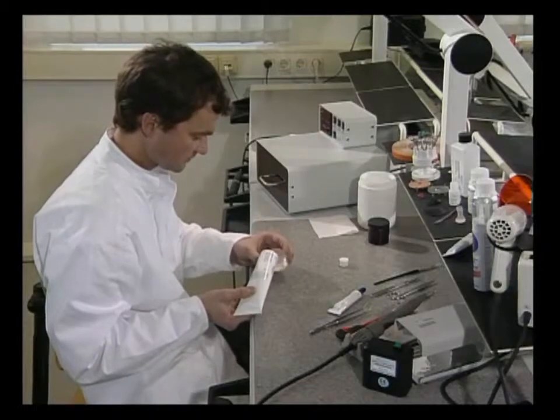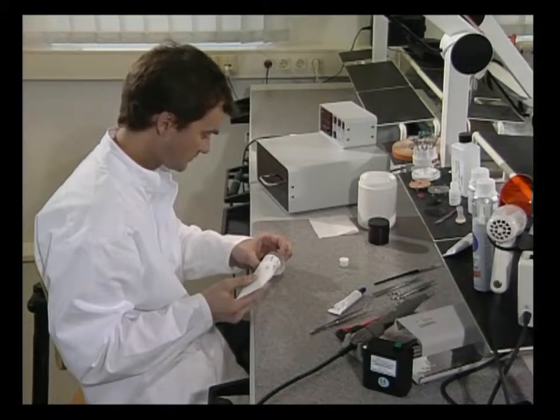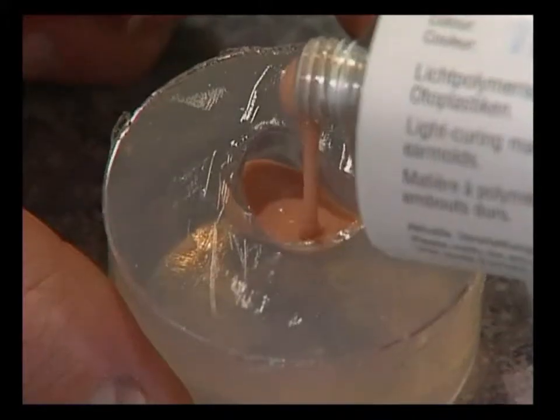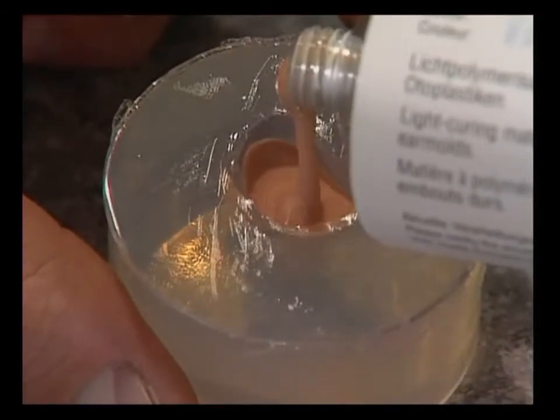The negative form made of duplicating material is completely filled bubble-free with the desired color of light curing material.